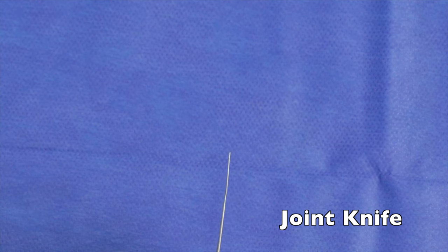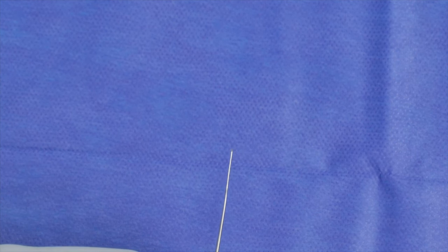This is a joint knife. In many ways, a joint knife is like a round knife — it's just quite a bit smaller. Classically, this is used to divide the incudostapedial joint, but practically, people use it for many different purposes. I'll tend to use it when I'm dissecting cholesteatoma off of microstructure, footplate, superstructure, et cetera. It kind of gives you that edge to pull things with, and it's a very small instrument like the round knife.